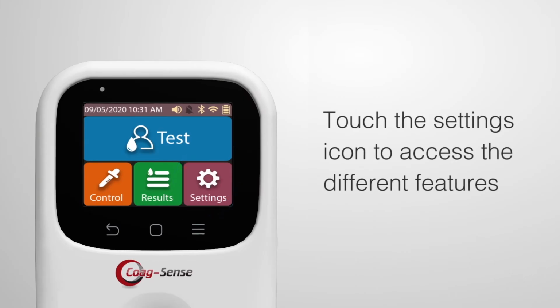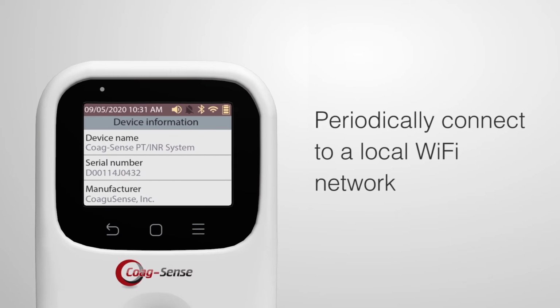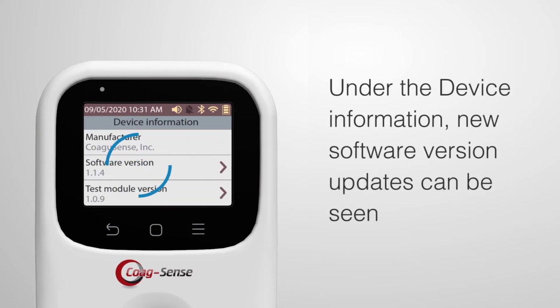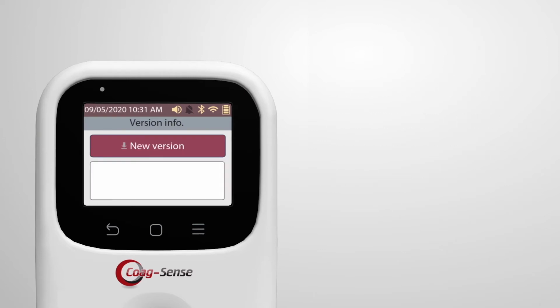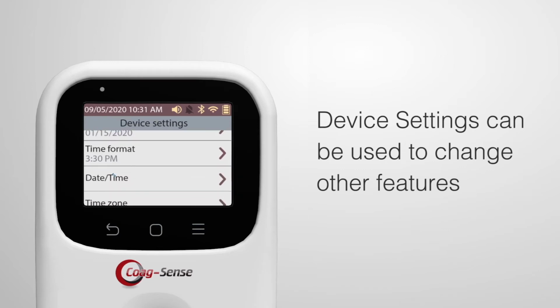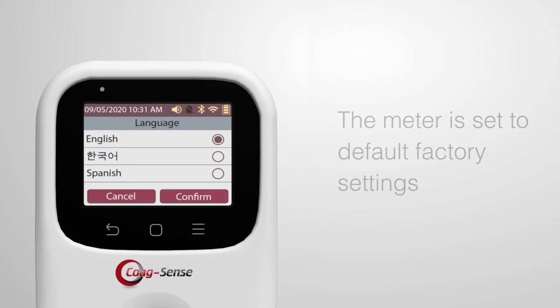Meter setup. Touch the settings icon to access the different features. It is a good practice to periodically connect to a local Wi-Fi network so that under the device information, new software version updates can be seen. Device settings can be used to change other features, such as date-time. The meter is set to default factory settings.